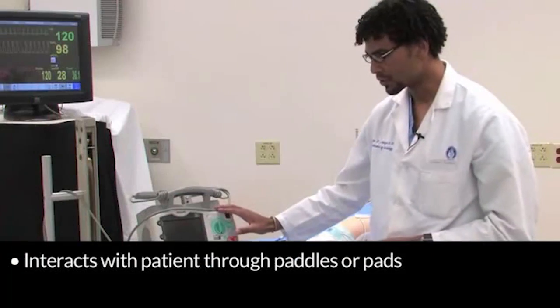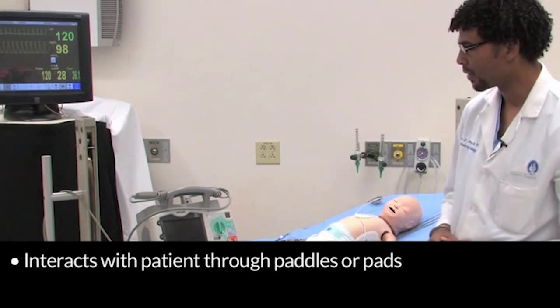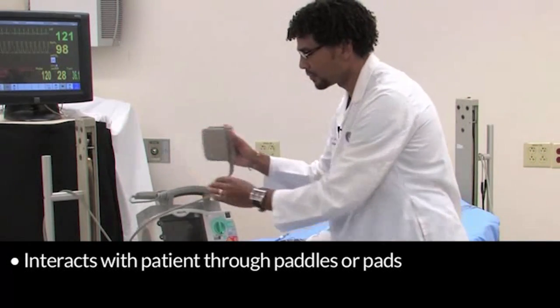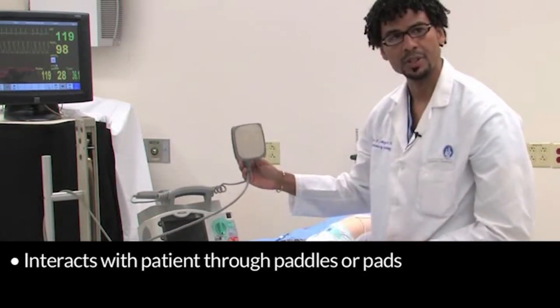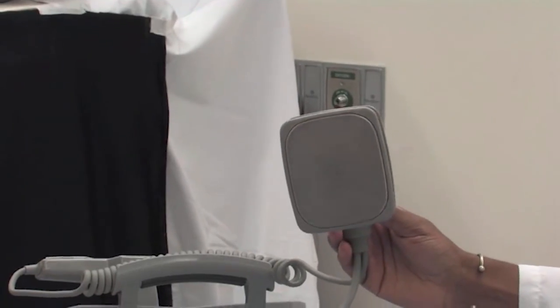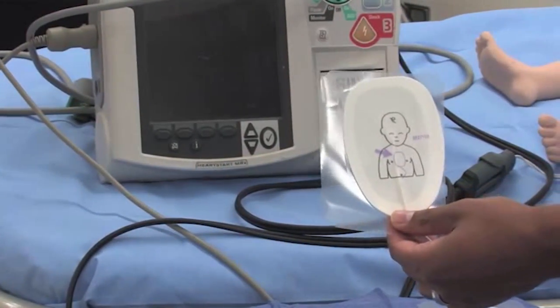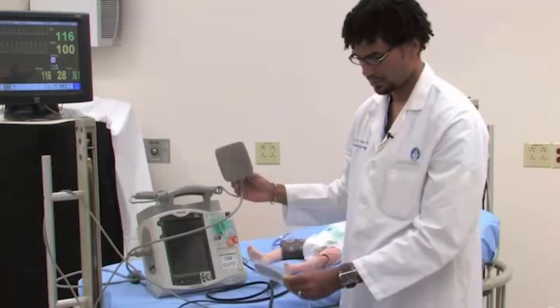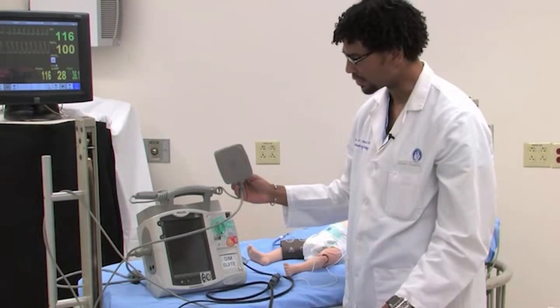The box interacts with the patient by means of paddles or pads. This is an example of a paddle, which typically is actually attached to the machine. This is an example of a pad, which is very much like an EKG lead in that it's got a sticky surface that can be attached to the patient.